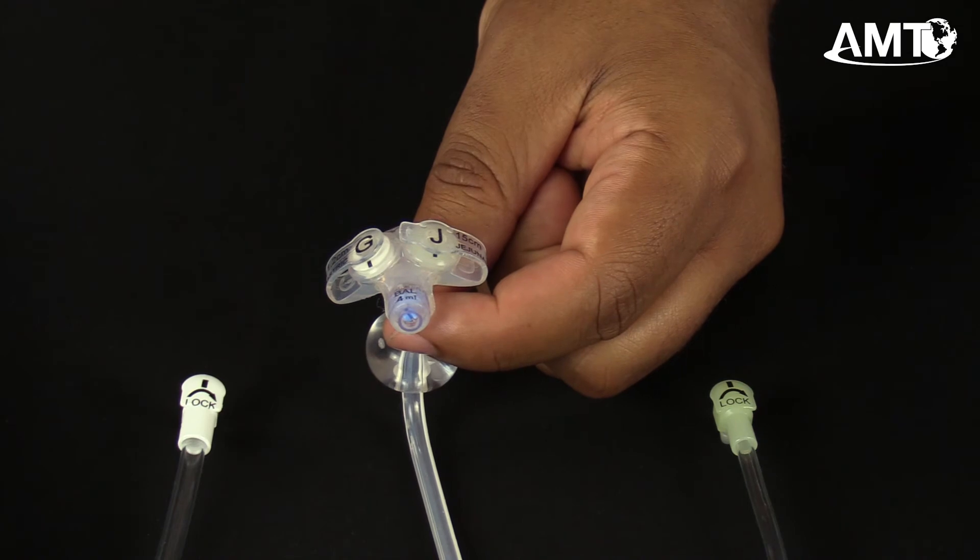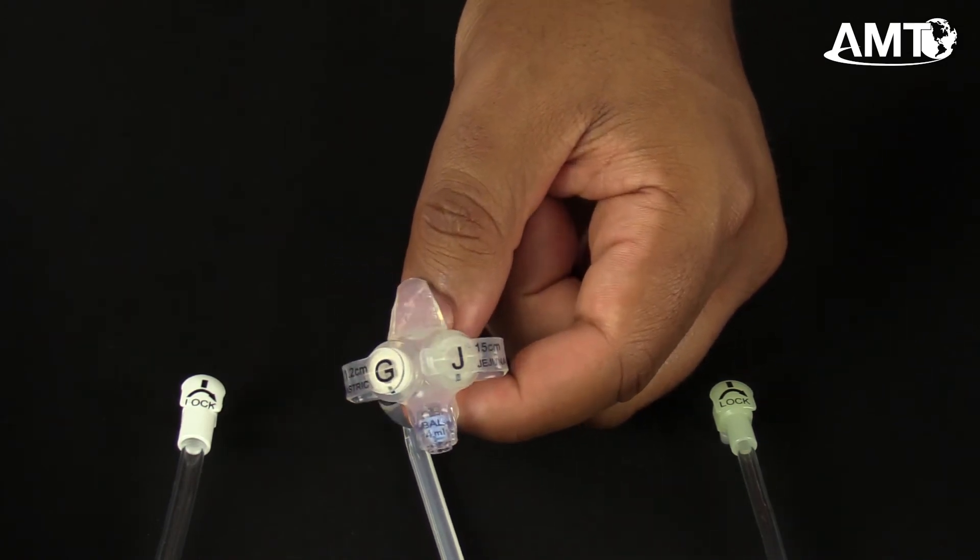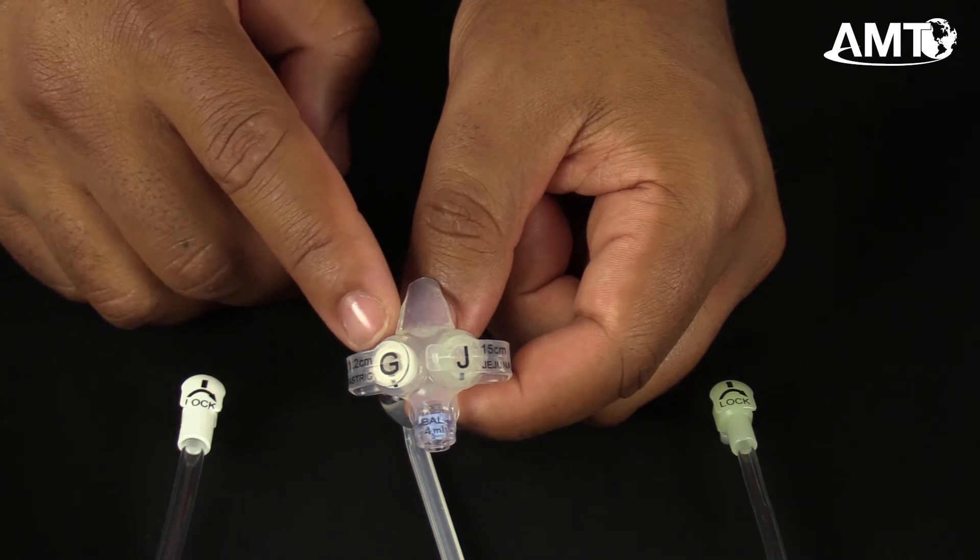Looking at the device, there are many components. The external bolster with etched French size and lot number for full traceability.